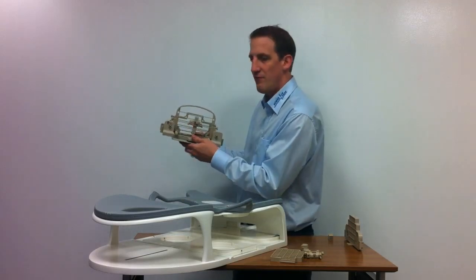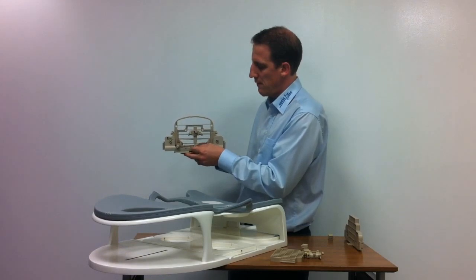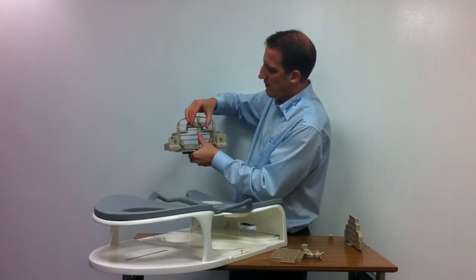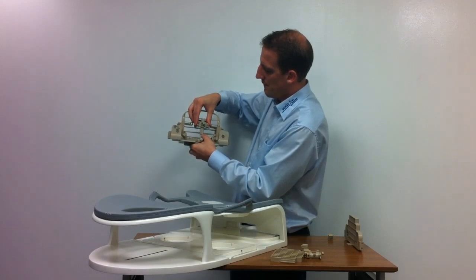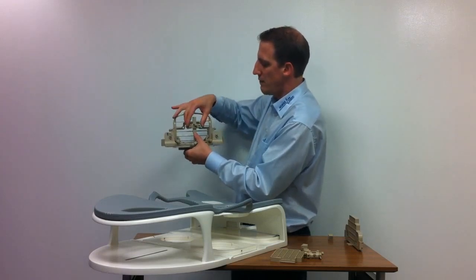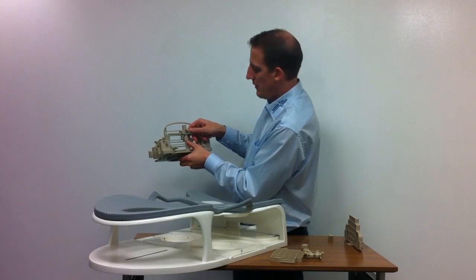Here we are very flexible. After we calculate the coordinates, we can move the bar to the left or to the right. We can also change the height of the bar itself in 10mm increments. We can adjust the height of this guidance rail, and we can adjust the angle of angulation here by 15-degree increments.